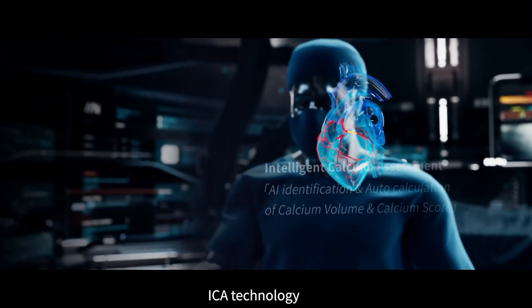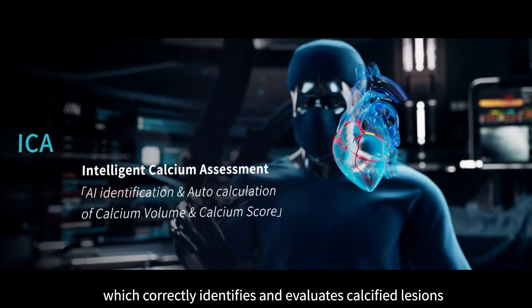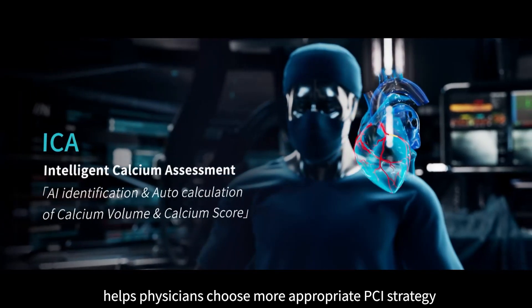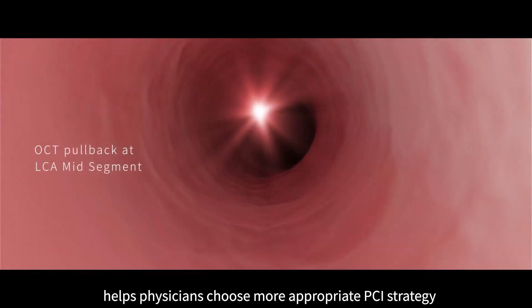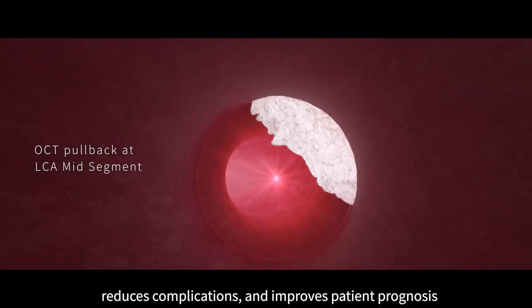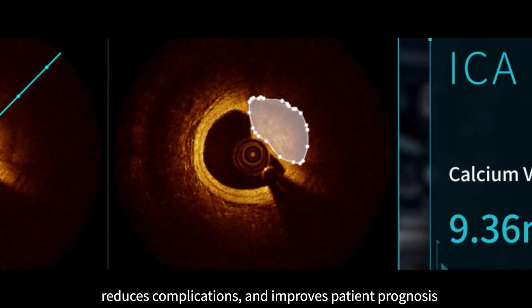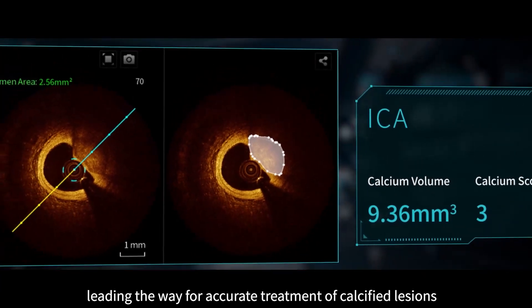ICA technology, which correctly identifies and evaluates calcified lesions, helps physicians choose more appropriate PCI strategies, improves the success rate of the procedure, reduces complications, and improves patient prognosis — leading the way for accurate treatment of calcified lesions.